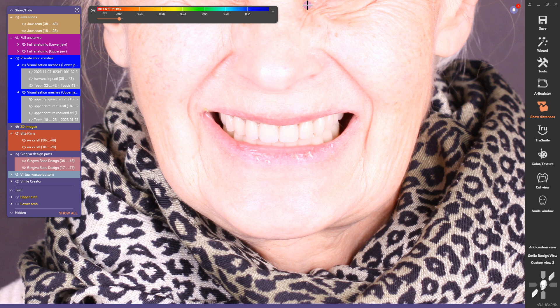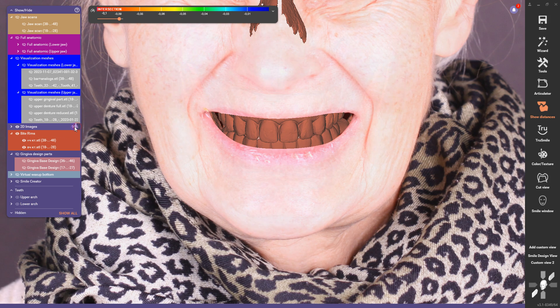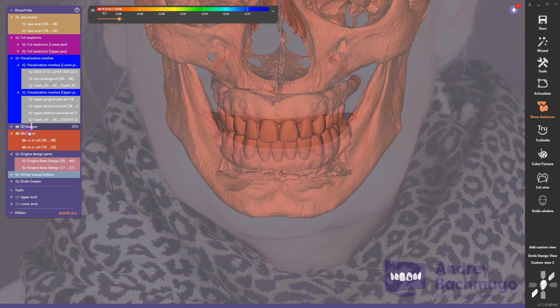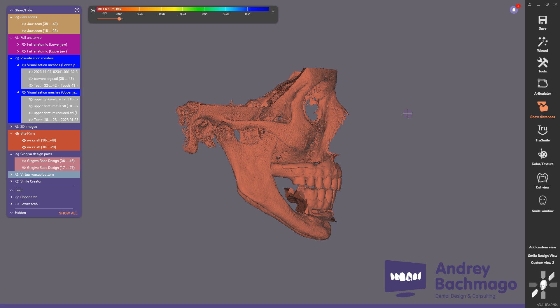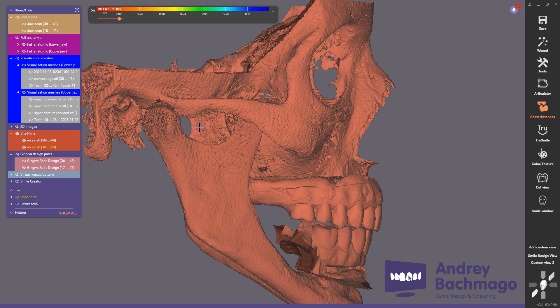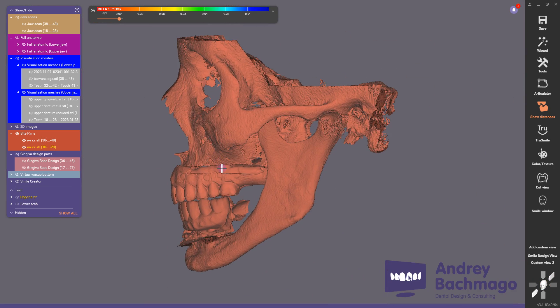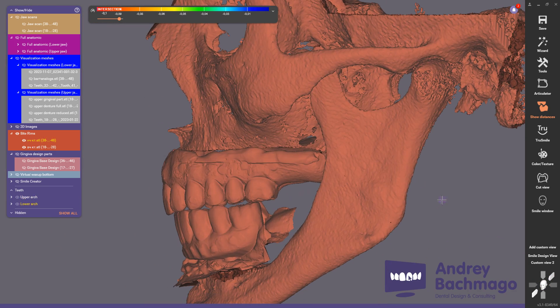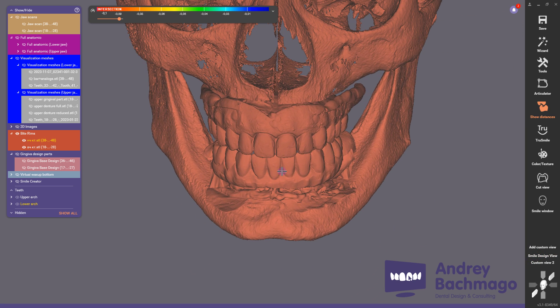First we see the portrait photo, with the upper jaw aligned with CT data and the lower jaw with CT files. These are segmented and mounted into the virtual articulator in the position we need to follow for the design.